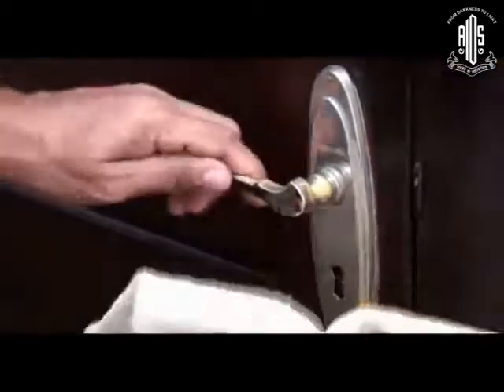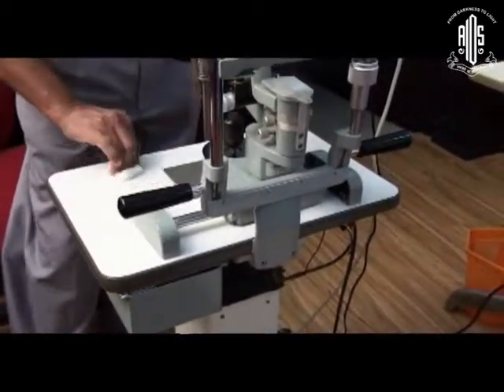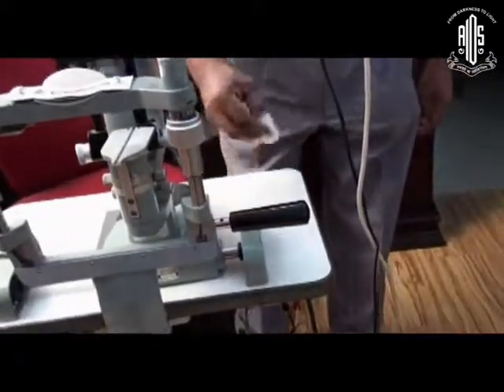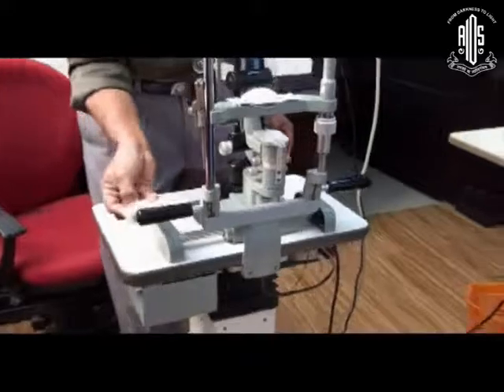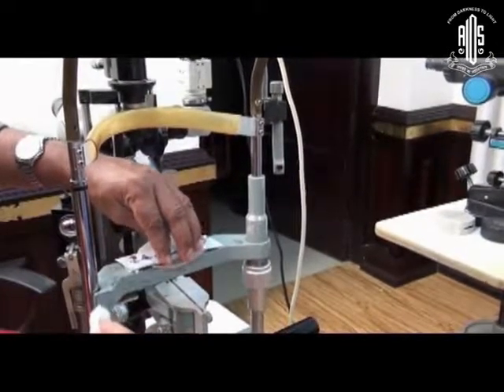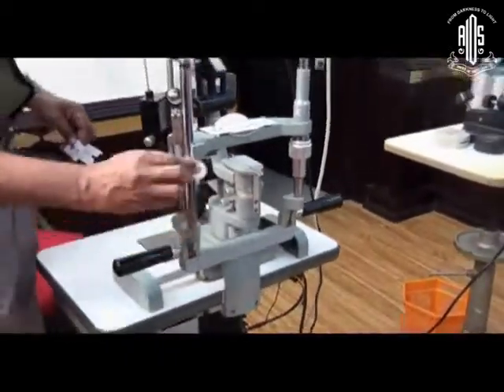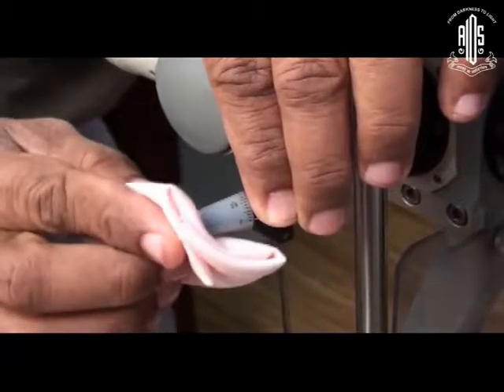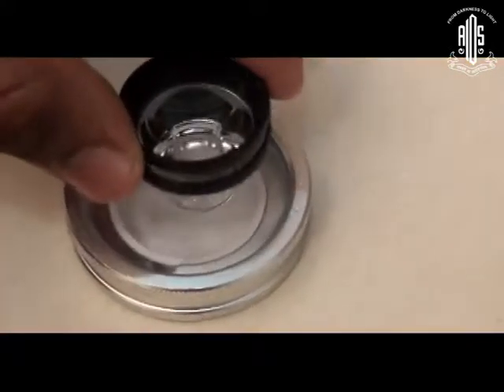You can use any disinfecting solution or agent you feel comfortable with. This is how you disinfect the slit lamp. Ideally, you should do it between infective patients. You will be doing a lot of service to the community — but if you don't do this, you might spread more conjunctivitis. You'd get more patients, but you would be doing injustice to the society.